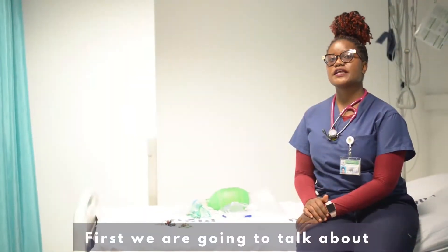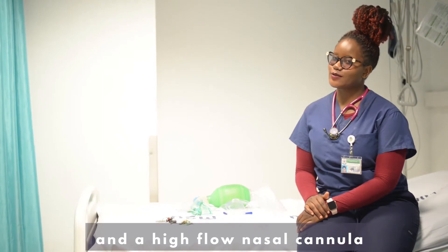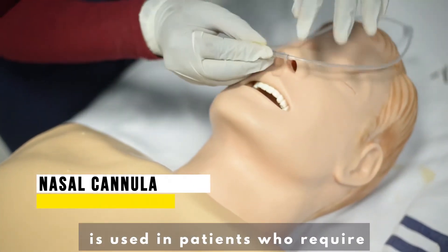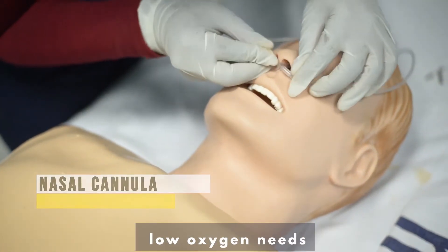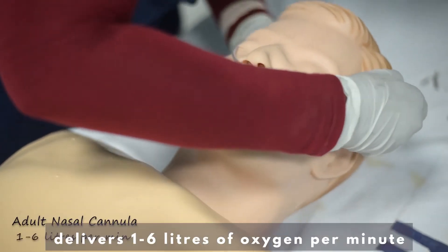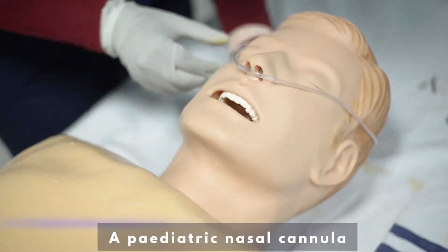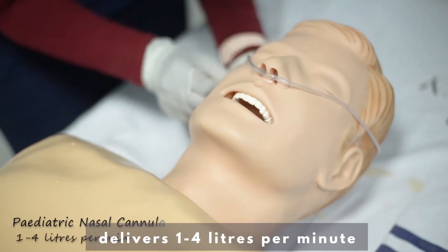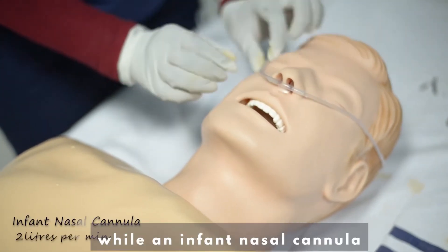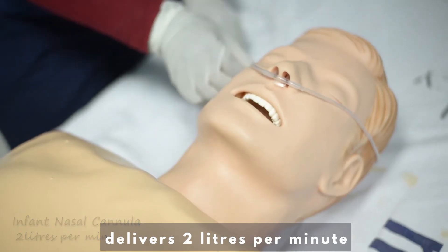First, we're going to talk about a nasal cannula and a high-flow nasal cannula. A simple nasal cannula is used in patients that require low oxygen needs. An adult nasal cannula delivers one to six liters of oxygen per minute. A pediatric nasal cannula delivers one to four liters per minute, while an infant nasal cannula delivers two liters per minute.